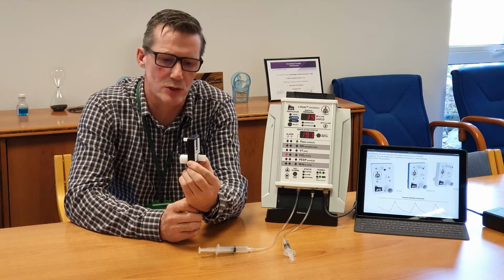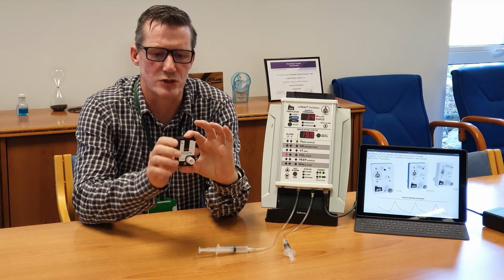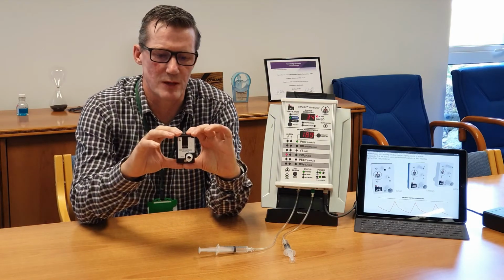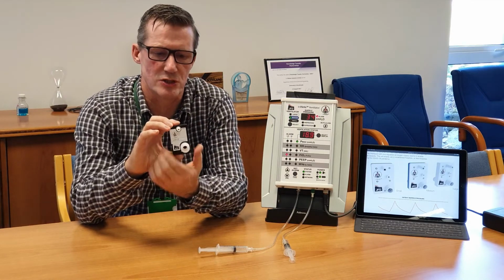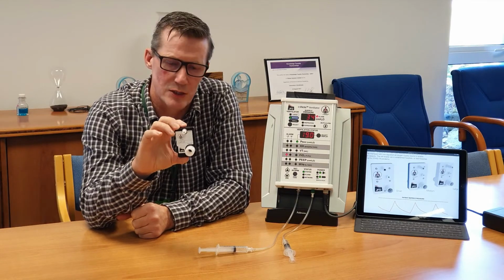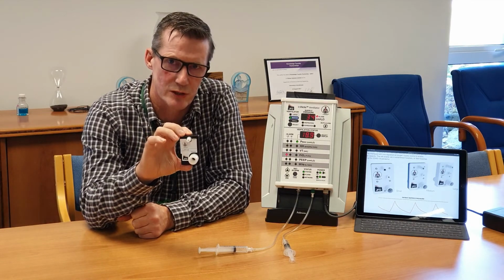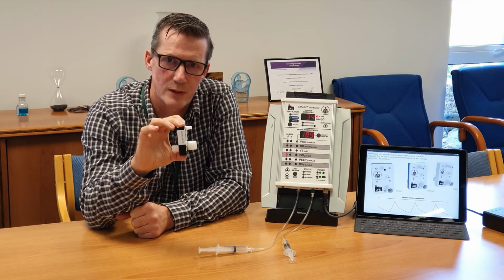It has a pedigree going back to the 1970s, where this design was developed by Vickers Medical, and it's been used in clinical applications for treating patients with hyperbaric oxygen therapy in a 100% O2 environment. And so it has provenance in a hospital and a clinical environment. And it's a very, very smart device. InVicto.